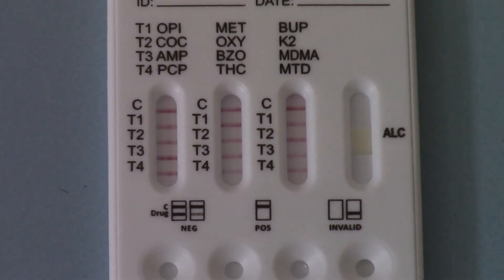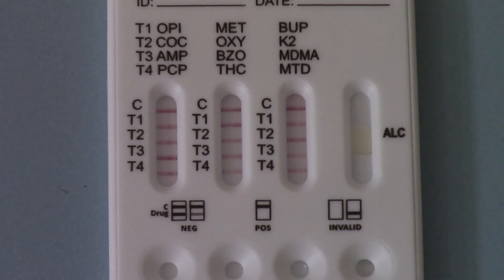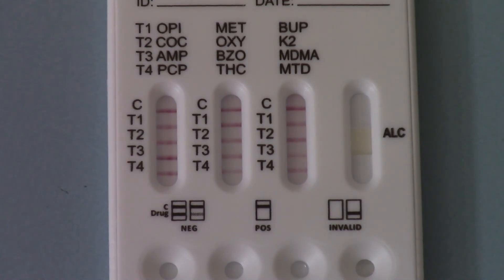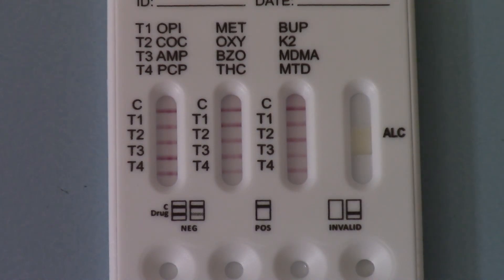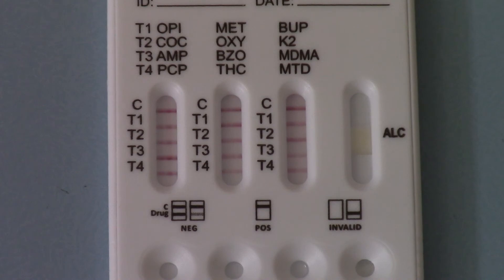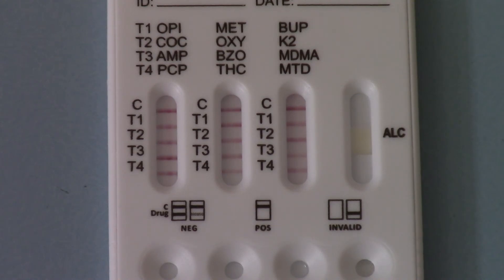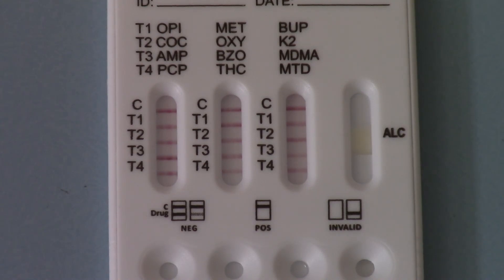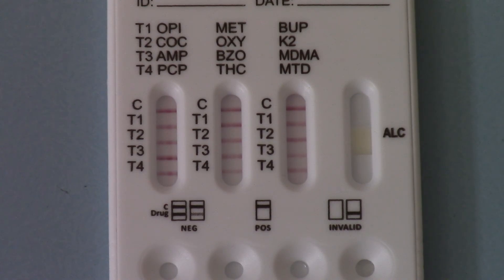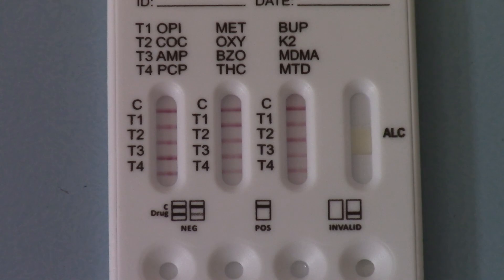This test pack comes in a carton of 25 tests, so it's excellent value for money. It's available from the UK Drug Testing site for next working day delivery to UK businesses and healthcare screeners.